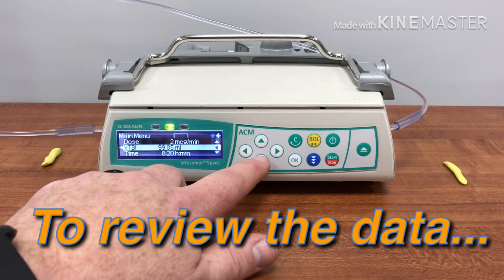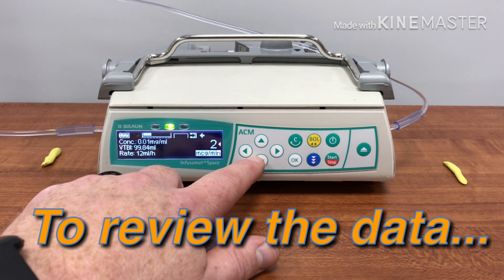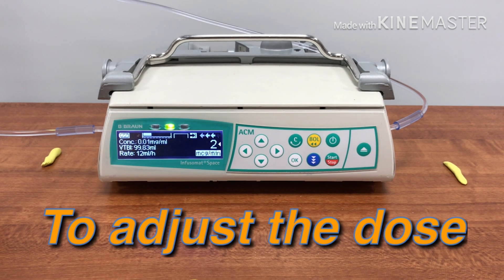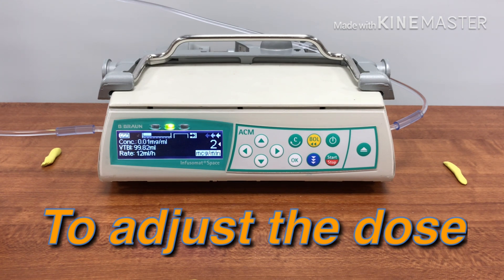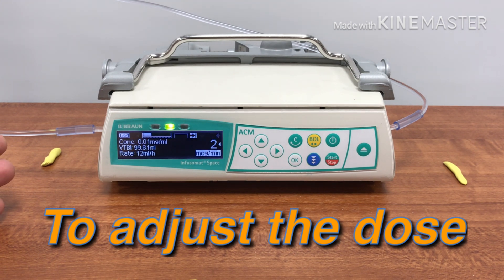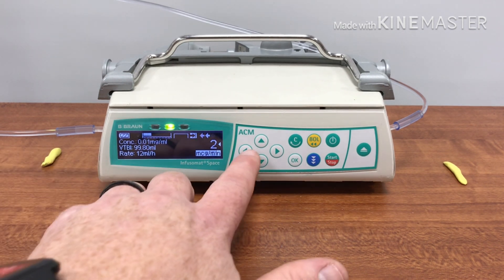It will also tell you how long you have until that volume is expelled — in this situation it's eight hours and twenty minutes. I hope to goodness that you can get your patient transported before then. Let's say the patient's blood pressure and stability is not trending fast enough and you want to adjust the dose up.